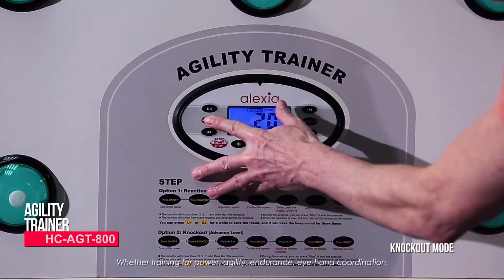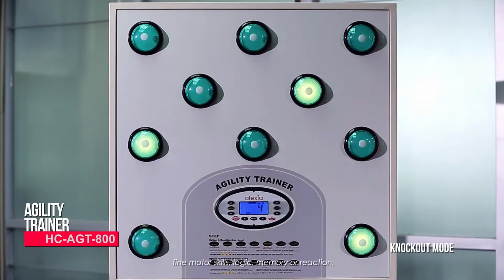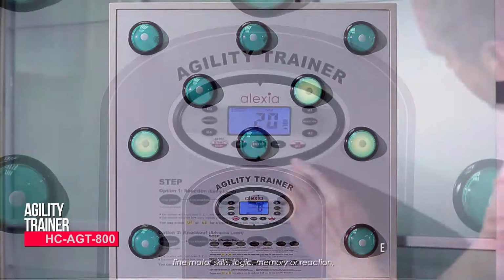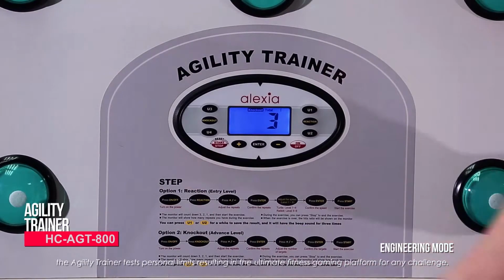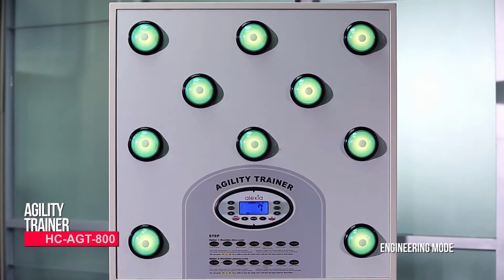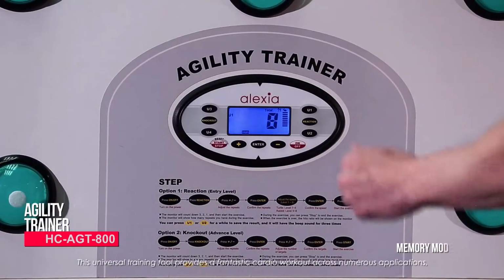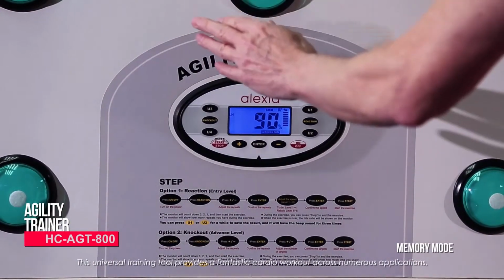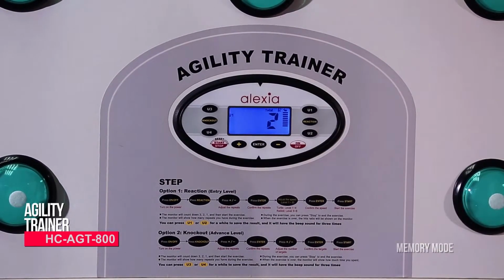Whether training for power, agility, endurance, eye-hand coordination, fine motor skills, logic, memory, or reaction, the Agility Trainer tests personal limits, resulting in the ultimate fitness gaming platform for any challenge. This universal training tool provides a fantastic cardio workout across numerous applications, including fitness and rehabilitation.